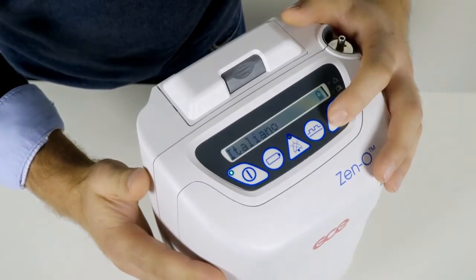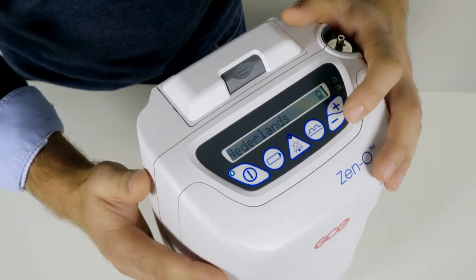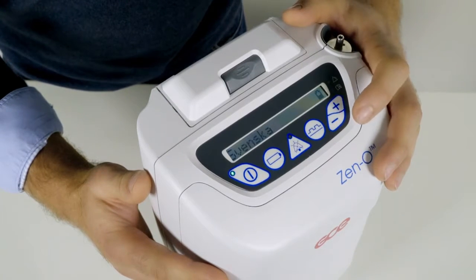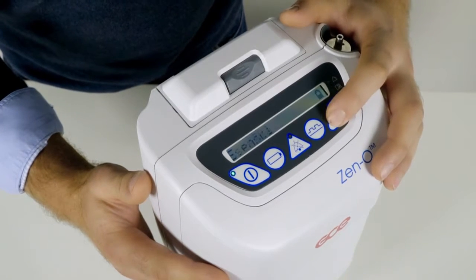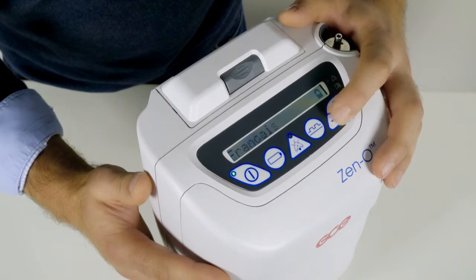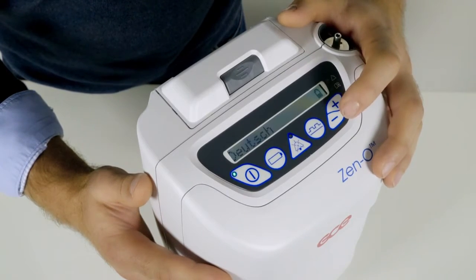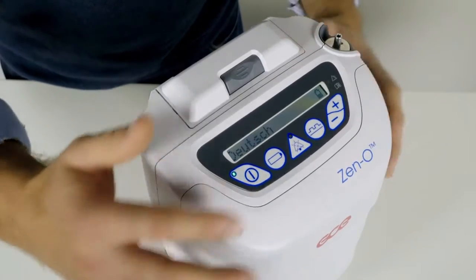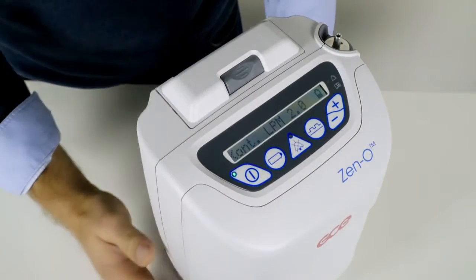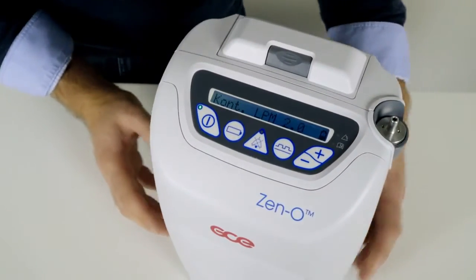Use the plus or minus buttons to cycle through the available languages on the concentrator. When the desired language is shown, press the mode button to select. The concentrator will change the language and return to the flow screen.